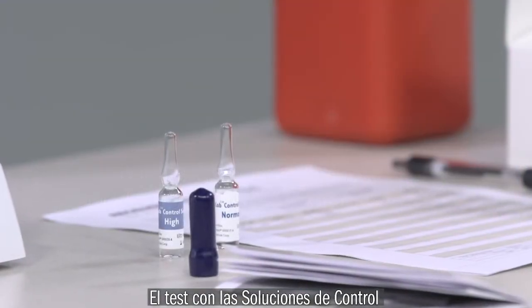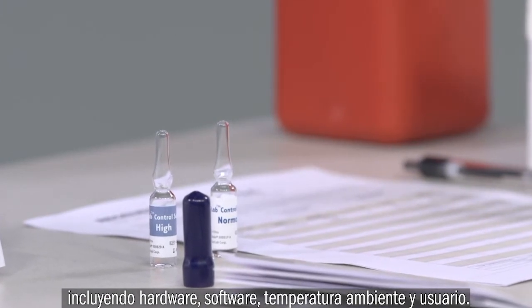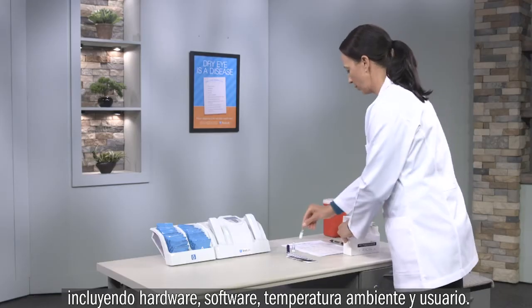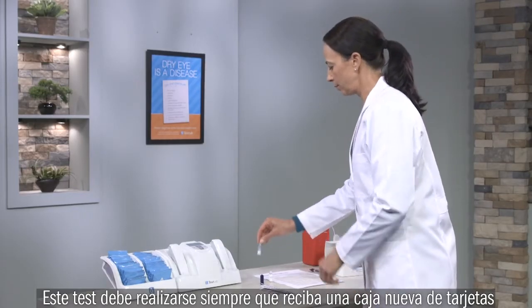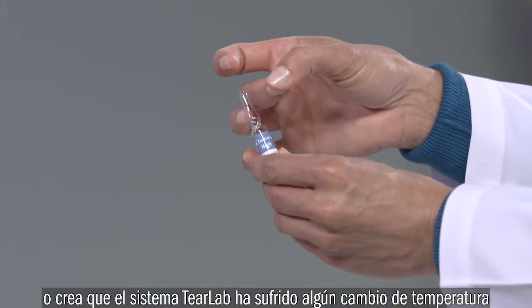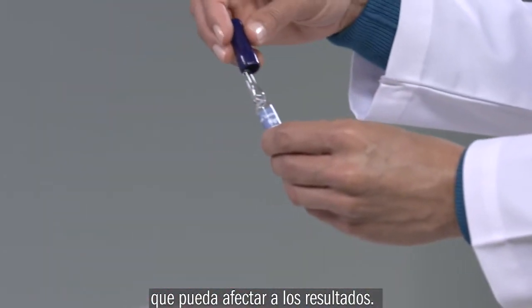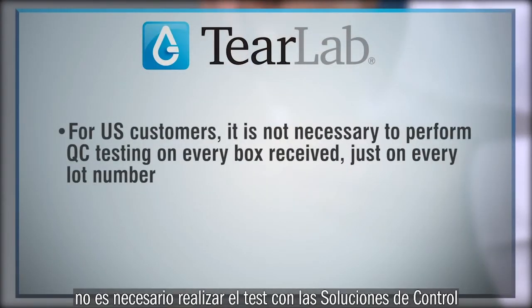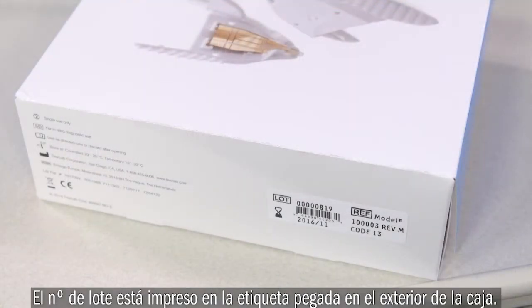The liquid control solutions test the total TearLab system, including the hardware, the software, the testing environment, and the user. You should always test control solutions when you purchase and receive new test cards or to determine if temperature fluctuation is affecting test results. For U.S. customers, it is not necessary to perform QC testing on every box received, just on every lot number. The lot numbers are printed on a label on the outside of each box of test cards.